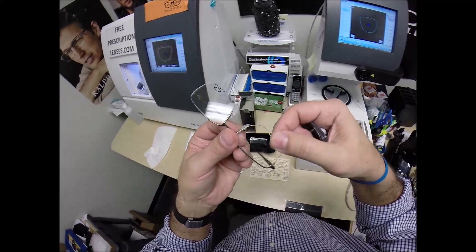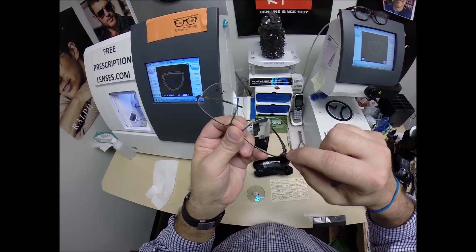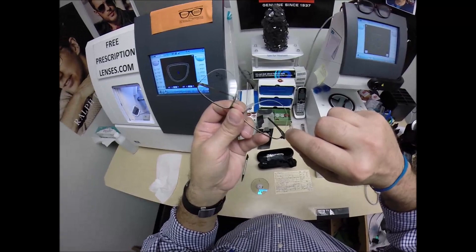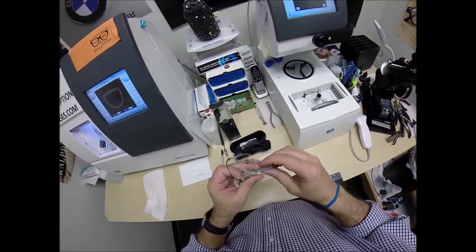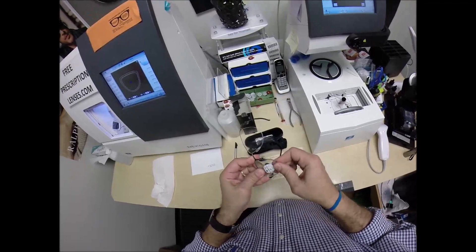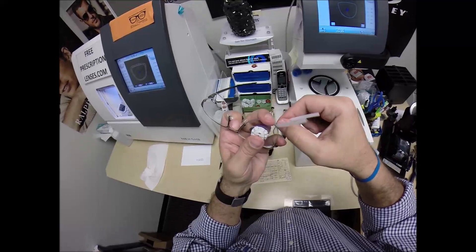I'm going to go ahead and mount this in there. Now what everyone sees is this 20 pound monofilament that holds the lens in by the bottom. What you don't see, there's a matching one in the top of the metal. You have a groove that's cutting to a metal and then a figure eight liner. It's called a figure eight because if you imagine just a two-story snowman instead of three like you normally see in the movies, part of that goes into the frame. The other part is protruding from the frame that goes into the groove at the top of the lens. I just want a quick inspection, make sure all the optical sawdust is out, and it is. We're going to tuck the lens in at the outside corner. Use this strap. Start at the outside corner, and when you hear that pop, it goes into the lens. I put my finger on there and slide that out.